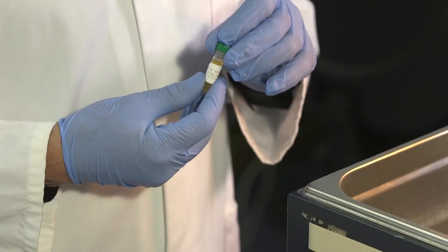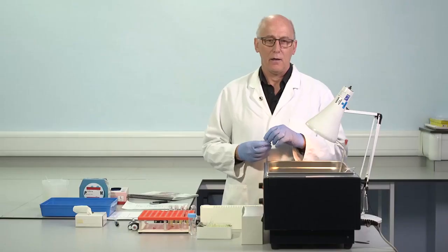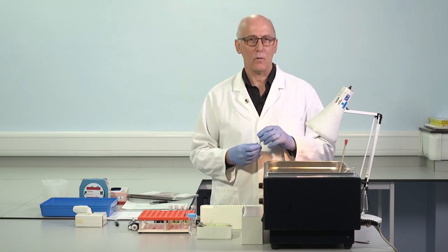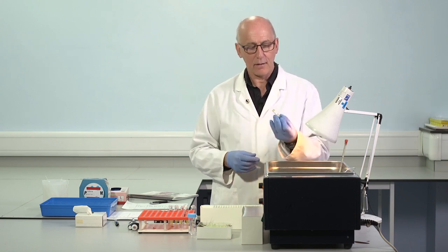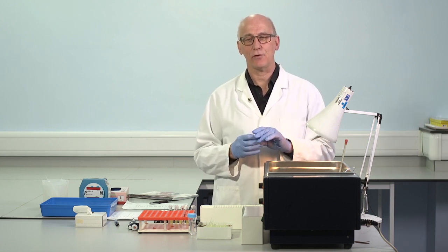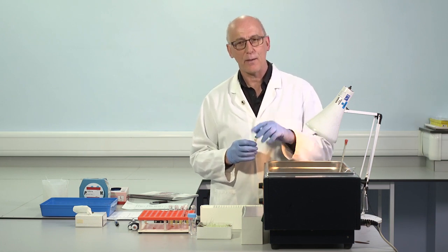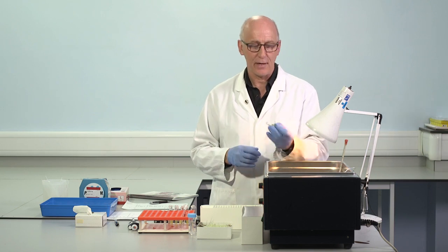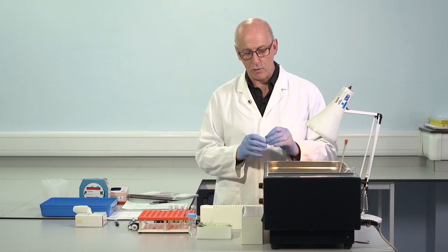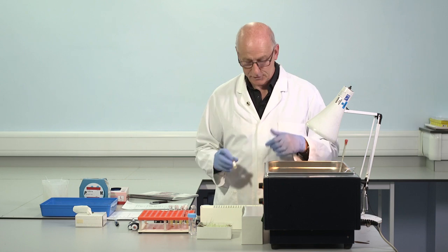So we'll be using a normal control. And this is prepared in this way. It's been thawed in the water bath. And when we thaw in the water bath, this should be for somewhere between 3 to 5 minutes. When we've completed that thawing, mix by inversion, just in case there has been any precipitation of, for instance, von Willebrand factor during the processing and storage. Shouldn't happen, but this allows for that possibility and resuspends any precipitate that may have occurred. So we have a normal control. The reagents will be up to temperature, so we're able to proceed.